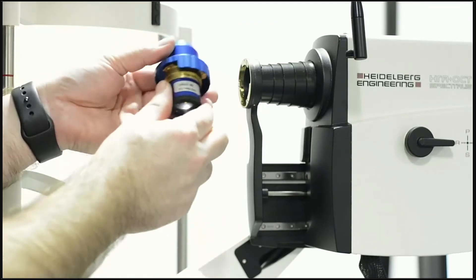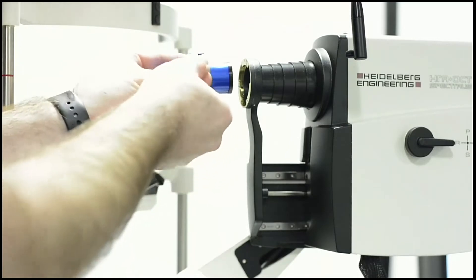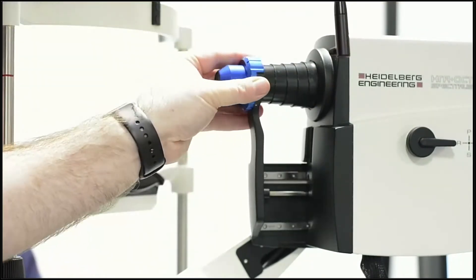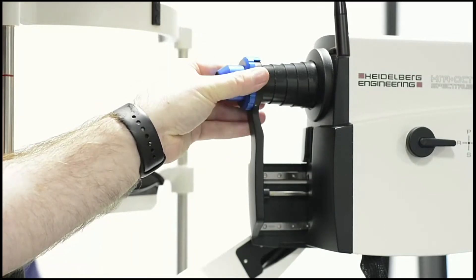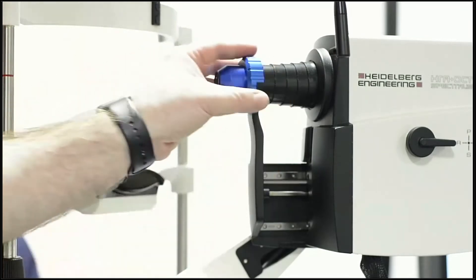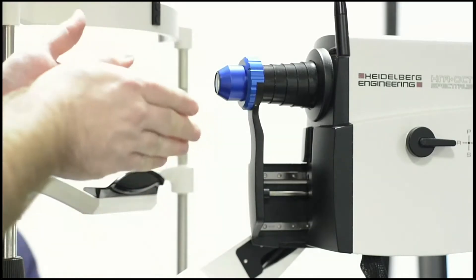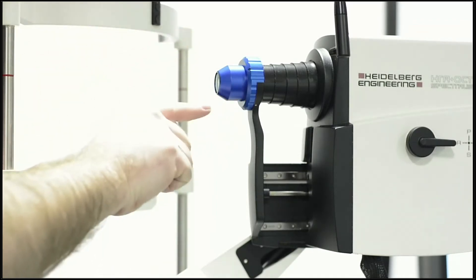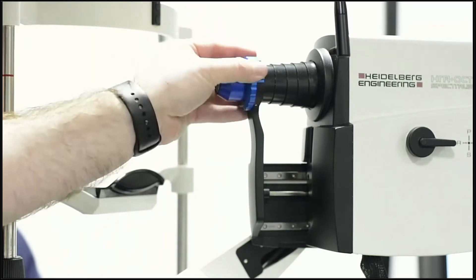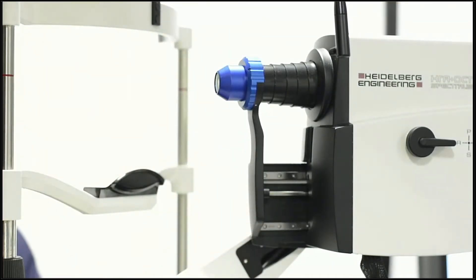On the brass ring of the Spectralis there's a little red dot — just like changing a lens on a camera — and it corresponds with a small red dot on the lens. If the dot has worn off on an older lens, look for where the collar cuts in. Line up the red dot with the housing, push it in, give it a little wiggle, and once it moves smoothly, rotate it clockwise until you feel and hear a satisfying click.